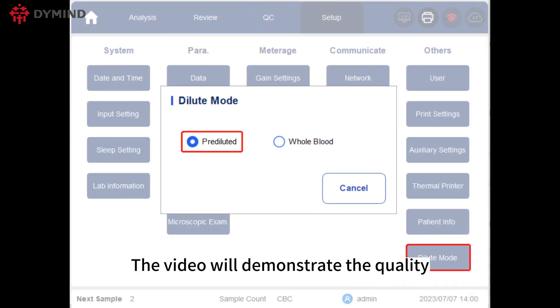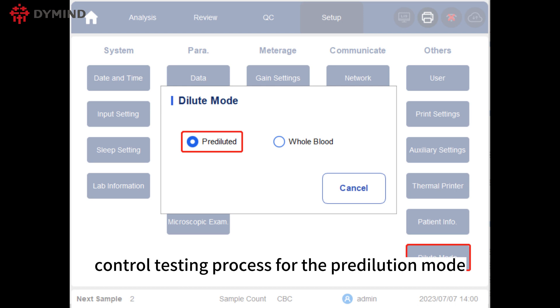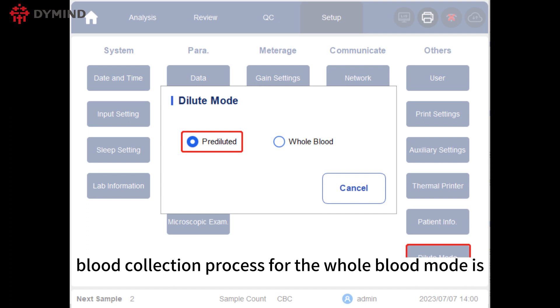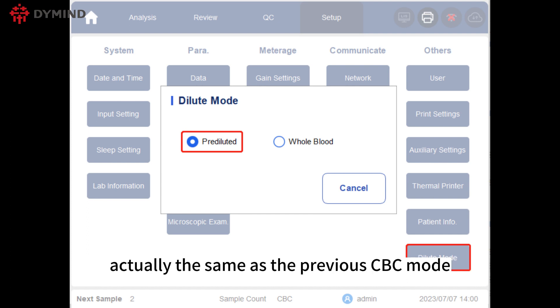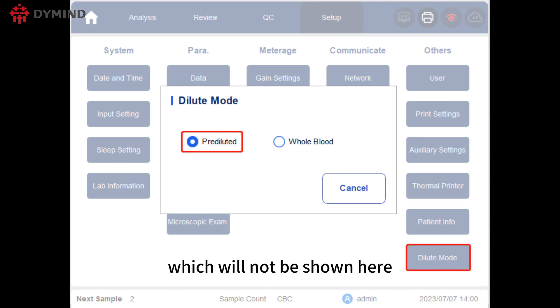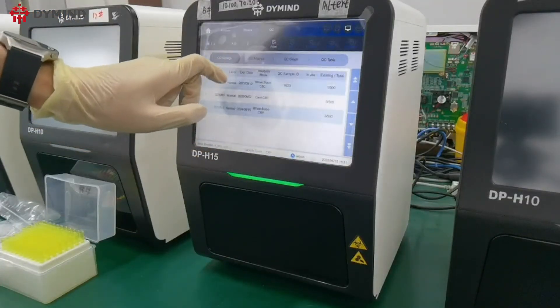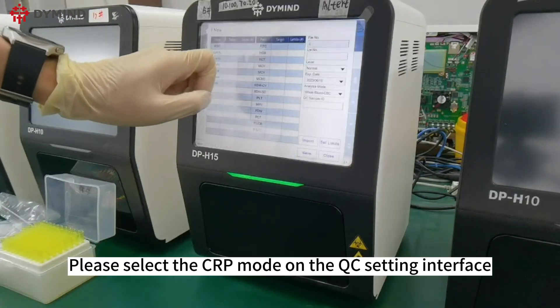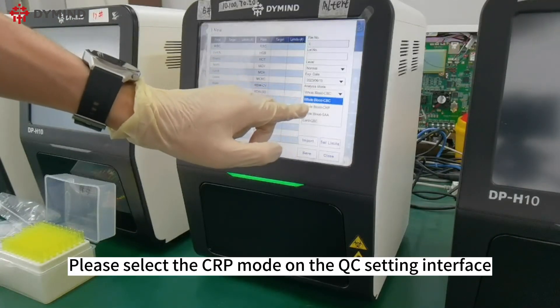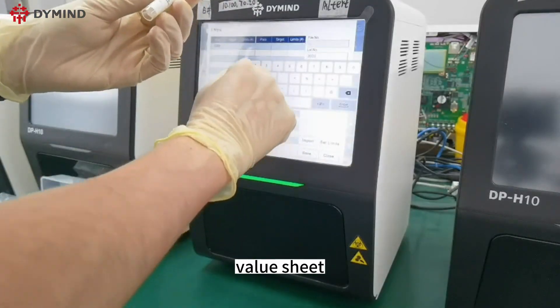This section demonstrates the quality control testing process for the pre-dilution mode. Note that the blood collection process for whole blood mode is the same as the previous CBC mode and will not be shown here. Please select the CRP mode on the QC Setting interface and contact the service engineer to request the target value sheet.